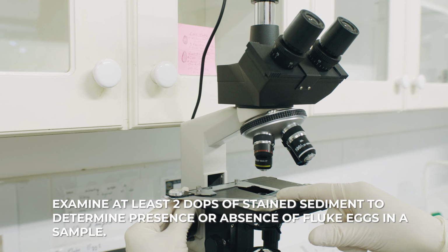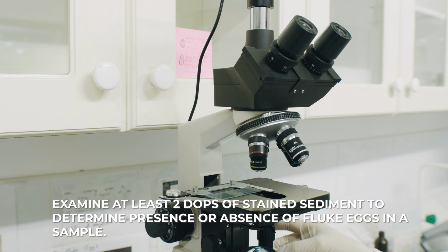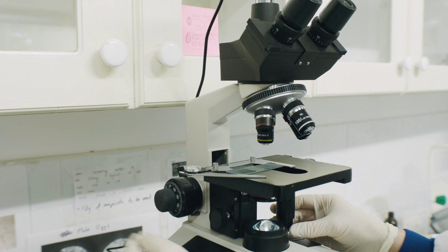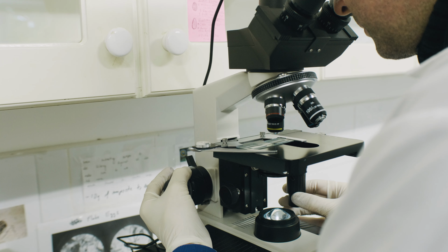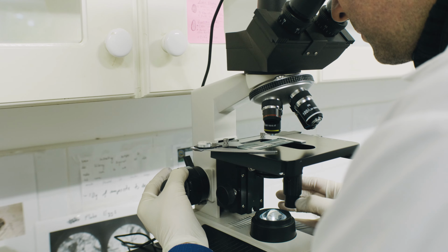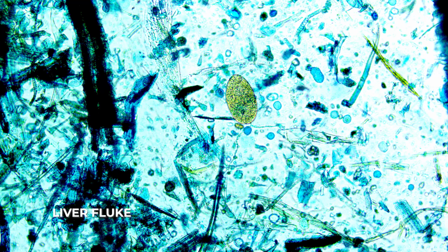Examine at least 2 drops of stained sediment to determine presence or absence of fluke eggs in a sample. Warning: nematode eggs may be present in the fecal sample, but the recovery with this technique is very low. Nematode eggs should be examined using the modified McMaster technique instead. Here are some examples of eggs found in the sediment.